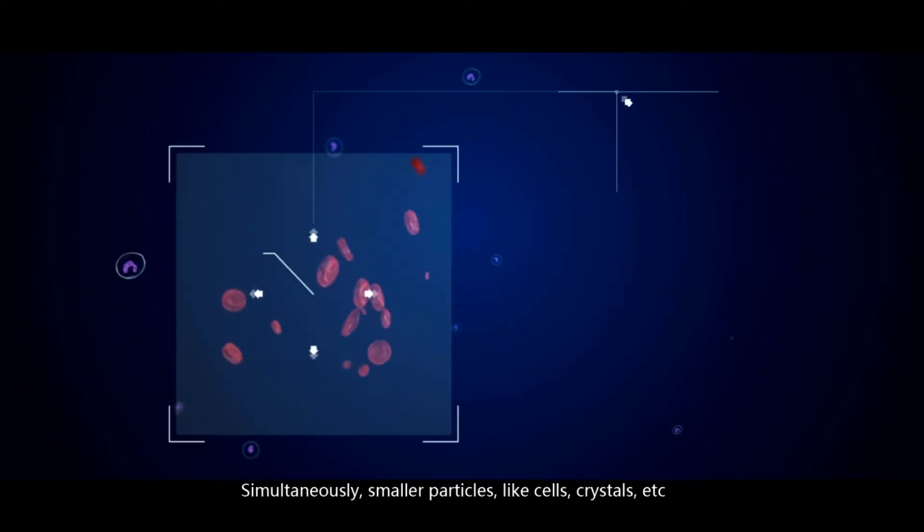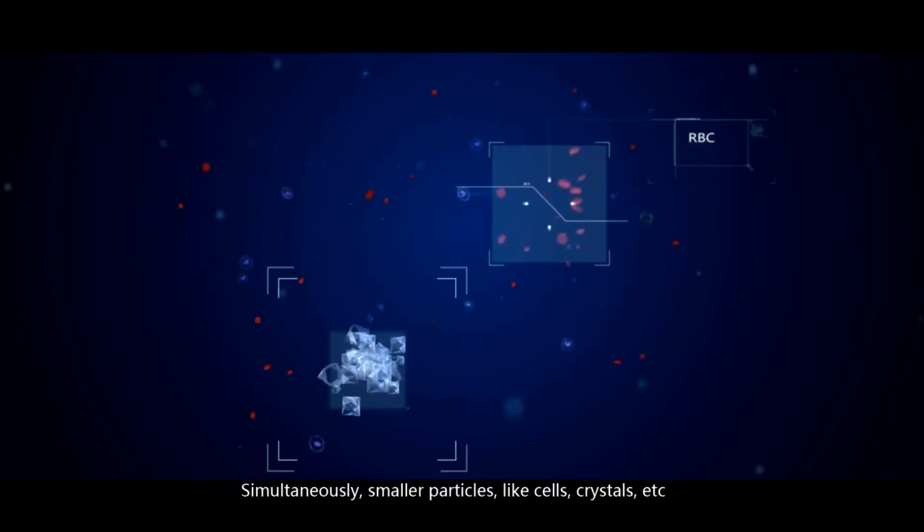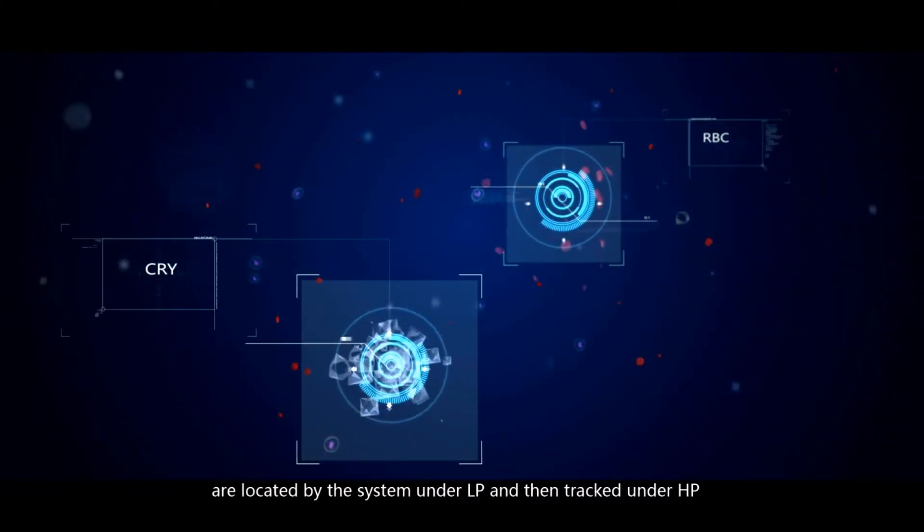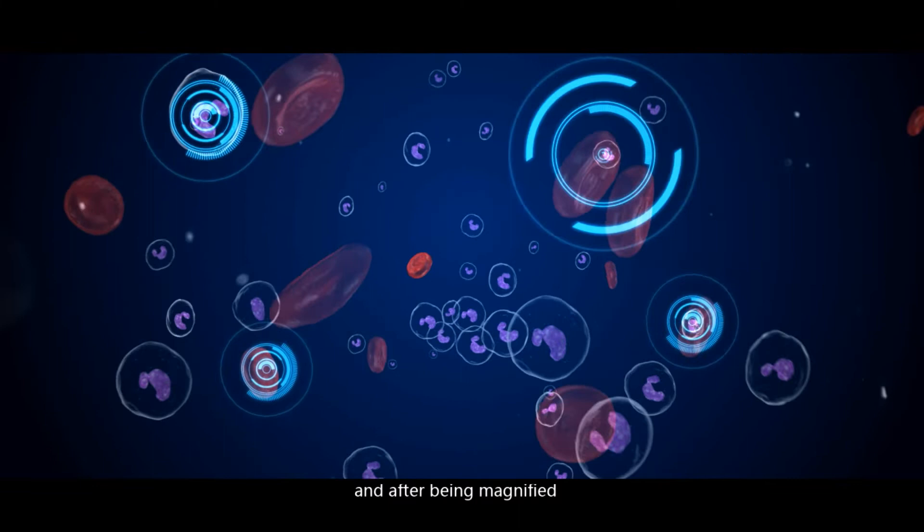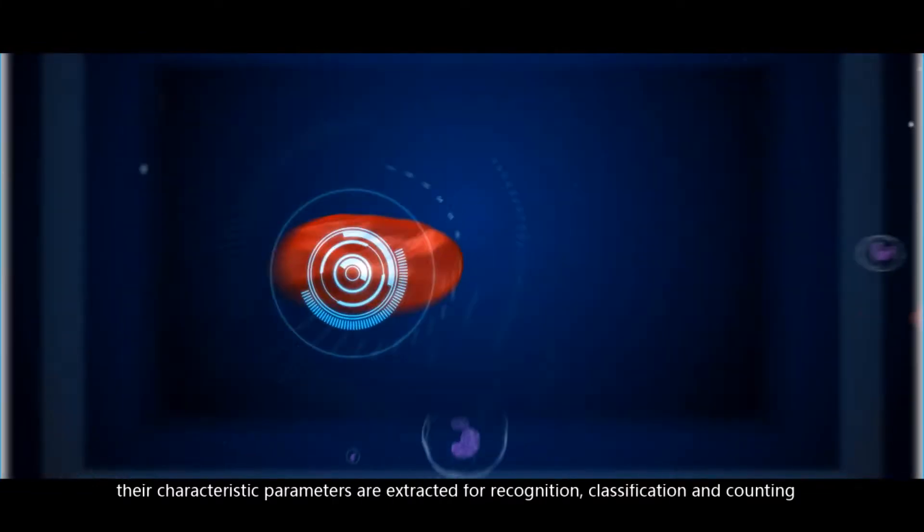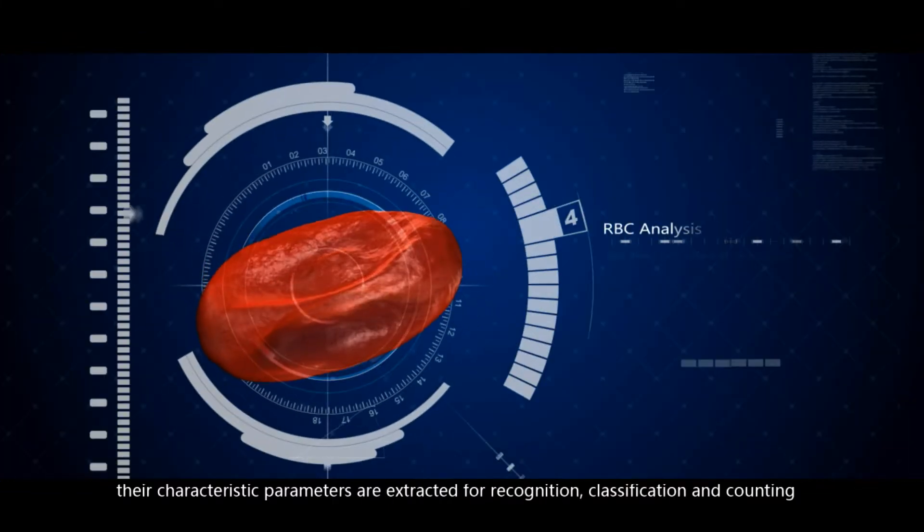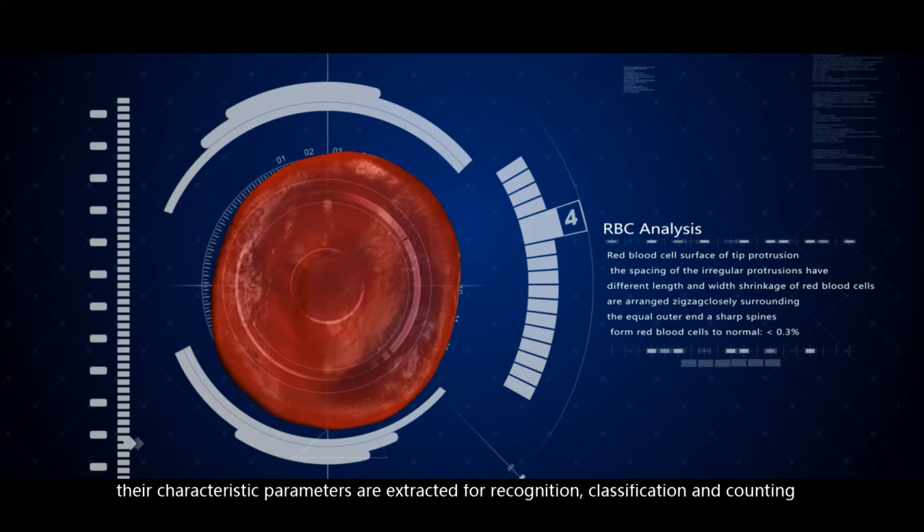Simultaneously, smaller particles like cells, crystals, etc., are located by the system under low power, and then tracked under high power, and after being magnified, their characteristic parameters are extracted for recognition, classification, and counting.